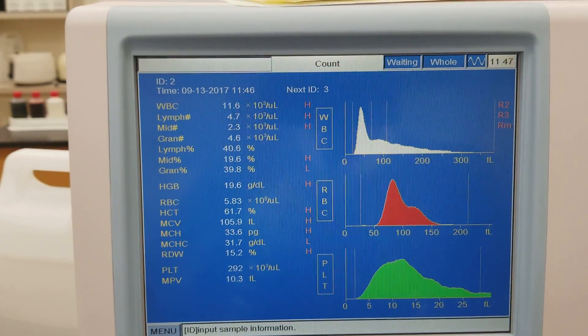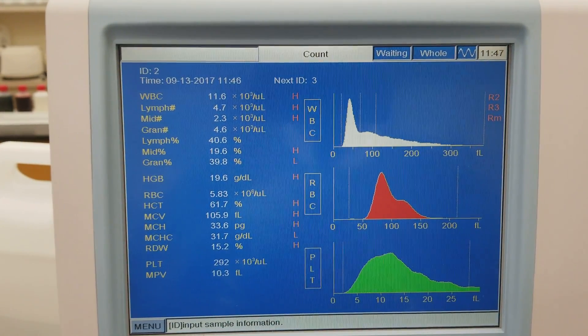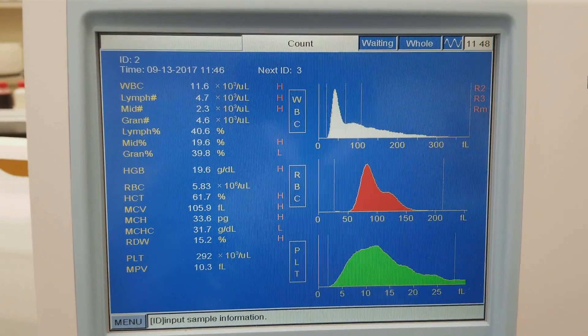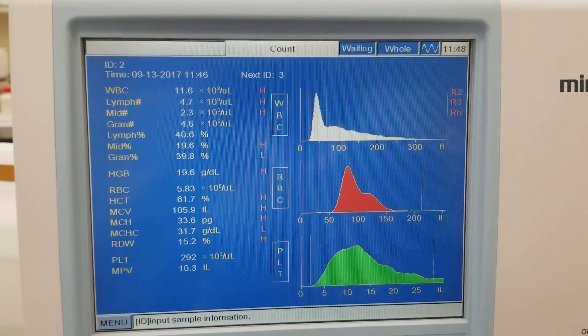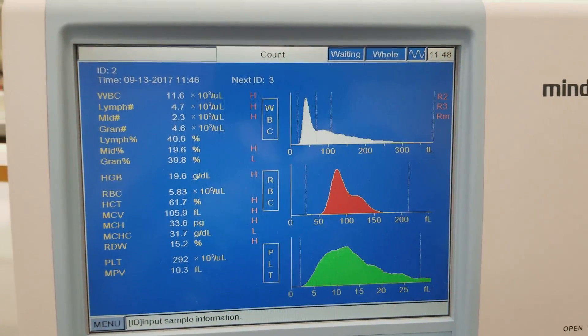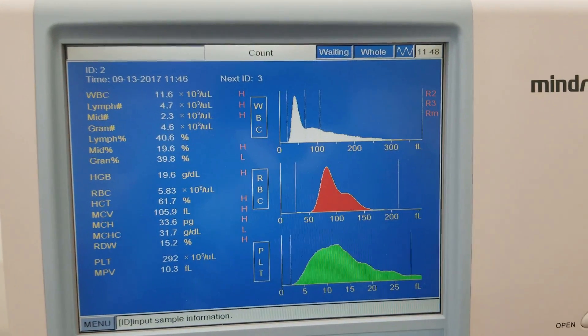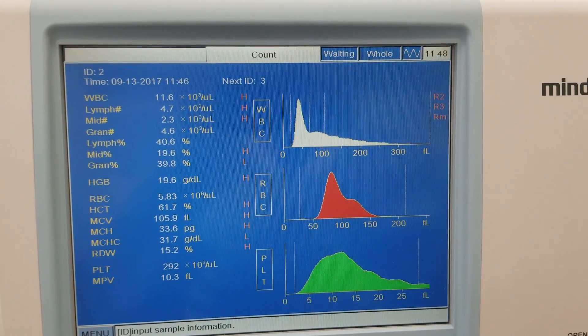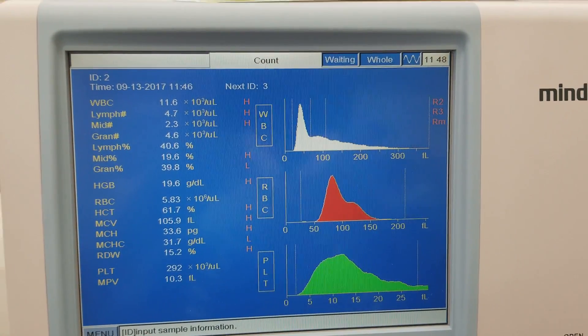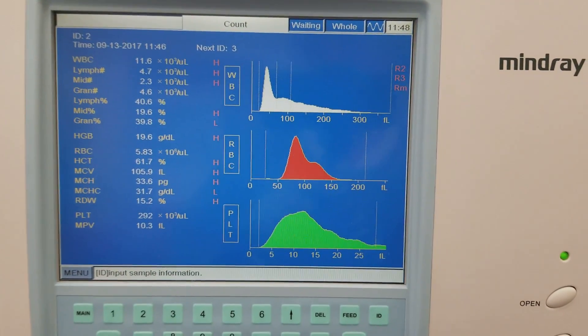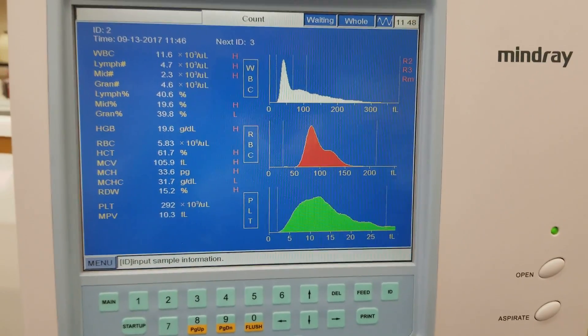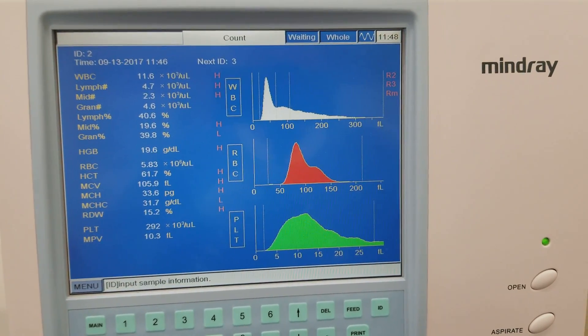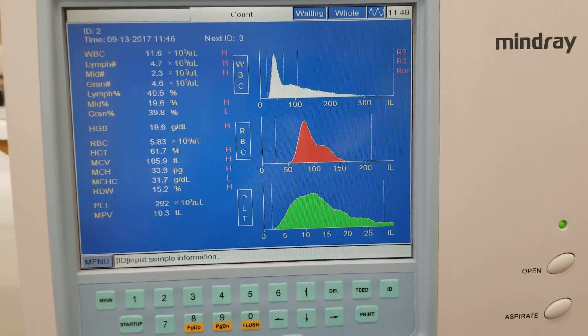This patient is showing high values for practically everything, so I'm concerned I didn't mix the specimen very well. It had been sitting for a while and I just mixed it a little bit when I showed you. I'm going to mix the specimen again and run it. I want to make sure this is not an instrument issue in regard to the lyse not being primed enough or anything like that from the previous videos. I know that this patient is normal, so let's see how that goes. I'm going to do this again and see what we get.